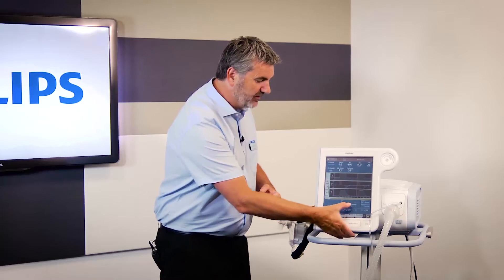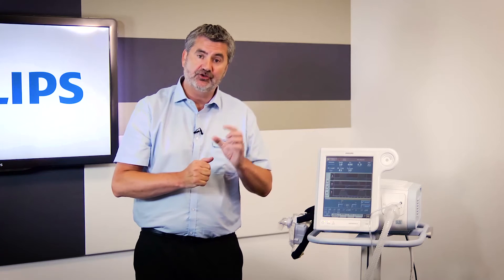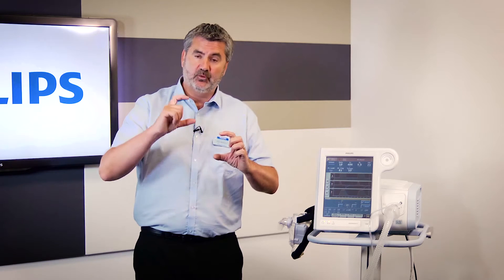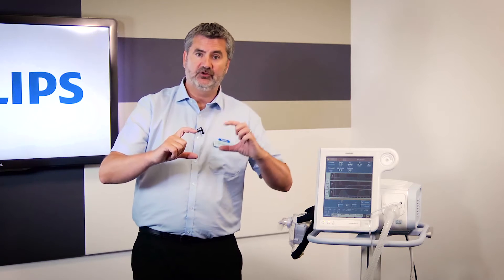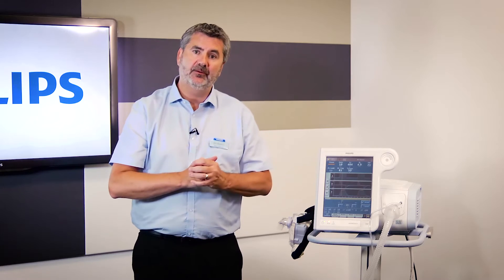For oxygen, we have the control to deliver it percent by percent, so you have that precise level of control to set whatever percentage you want. It's also fully alarmed.